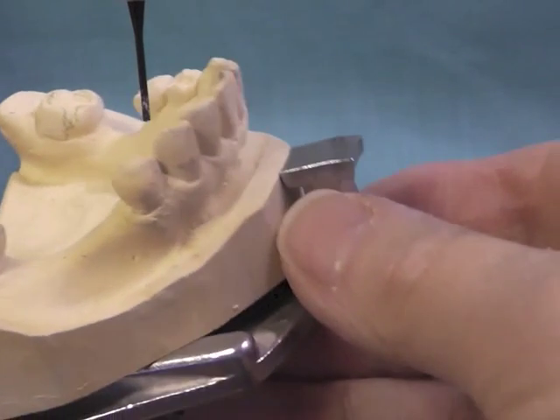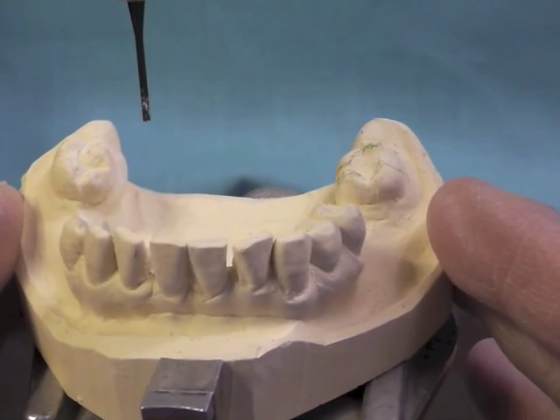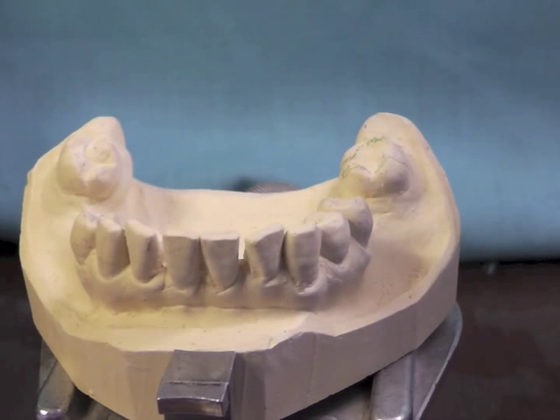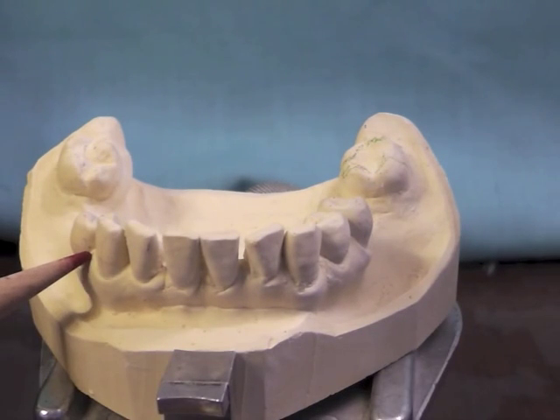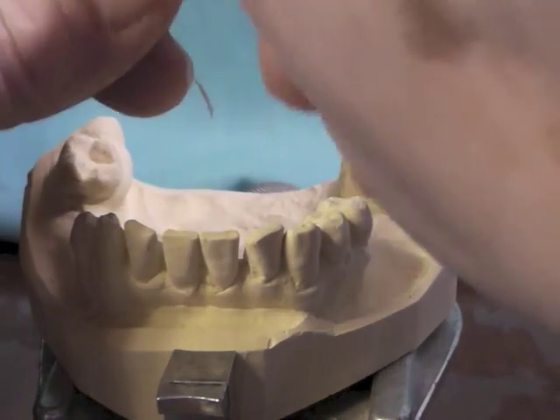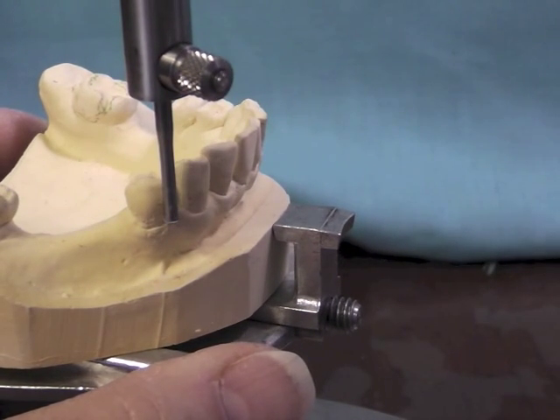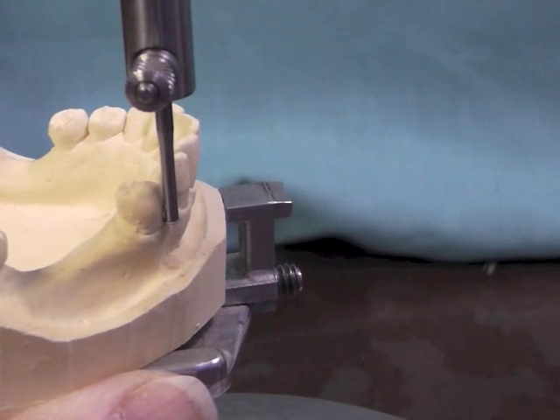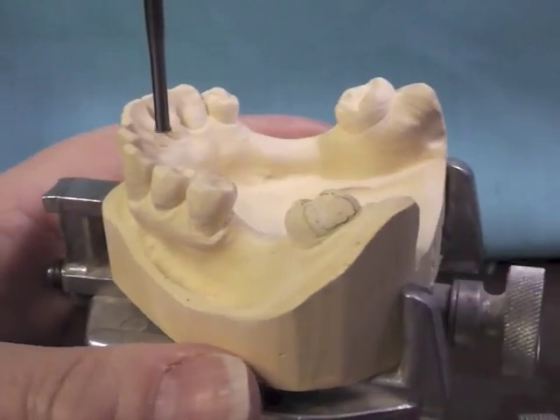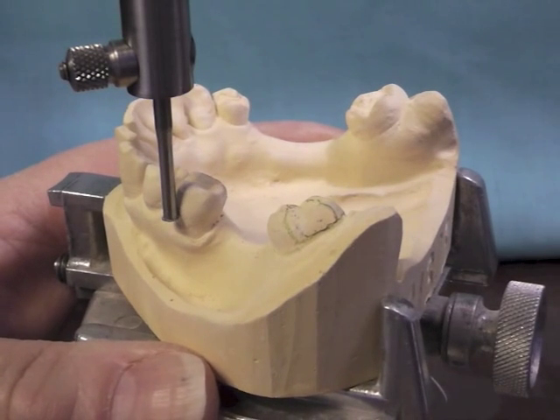So we've made a compromise by changing our anterior-posterior tilt without hopefully getting these uneven again. We would like to have a 0.01 mesiofacial undercut on our premolar and on this tooth on the buccal. So I'm going to put in an 0.01 undercut gauge and see what I have in those areas. I can see that I still have a 0.01 undercut in the mesiofacial area — it's probably moved a little more cervical than it was, but that's not a bad thing. And I still have a 0.01 undercut on the mesiofacial of this premolar.